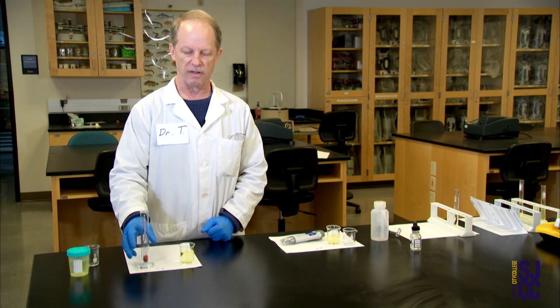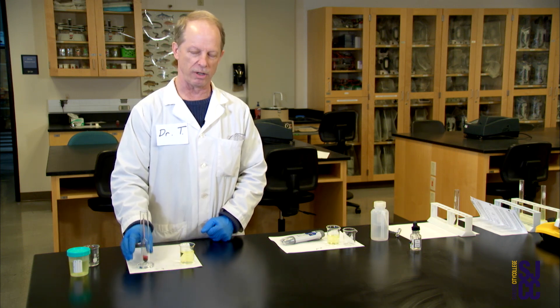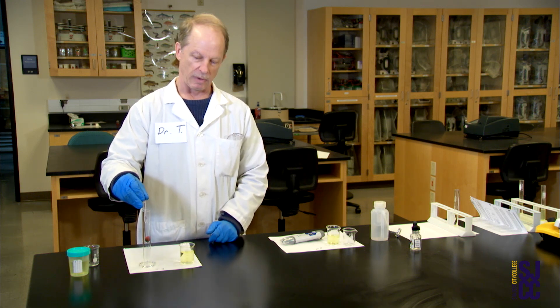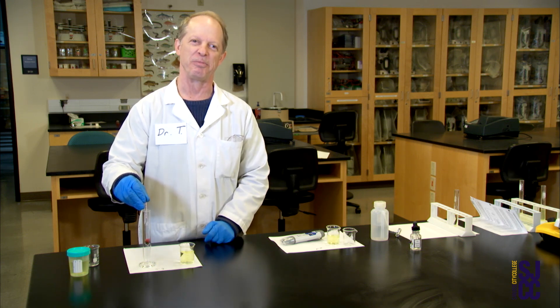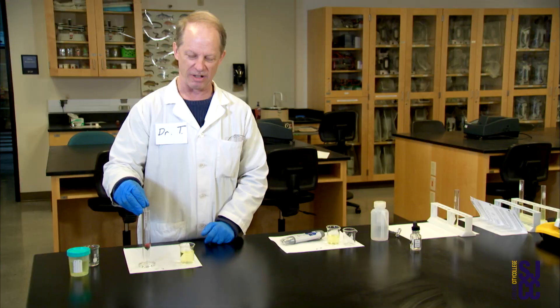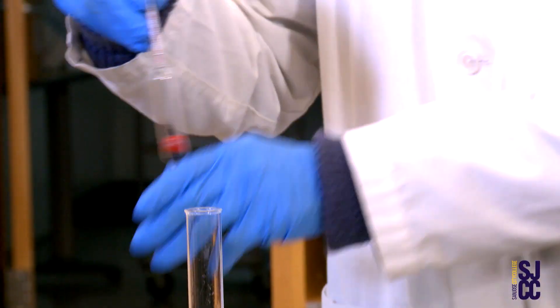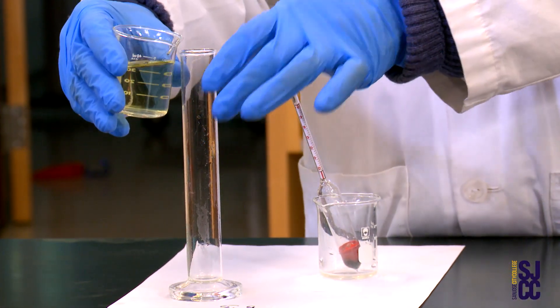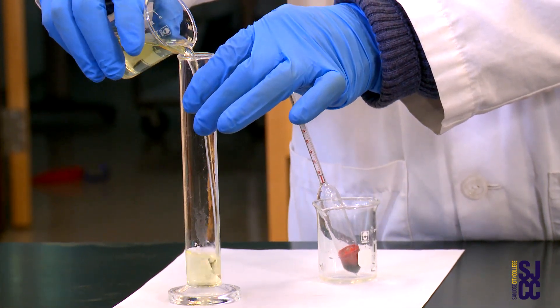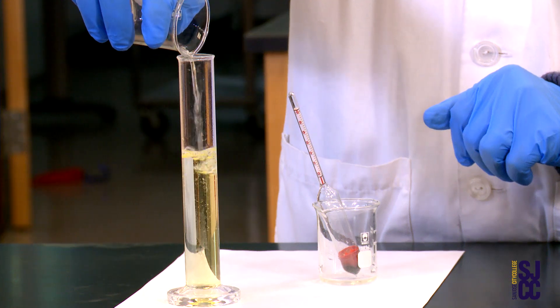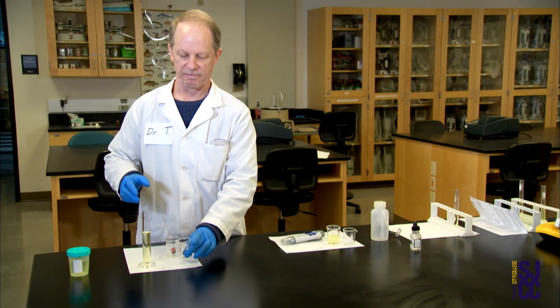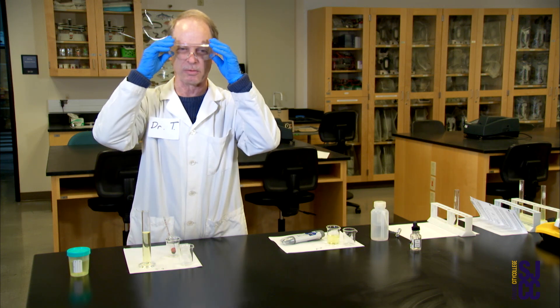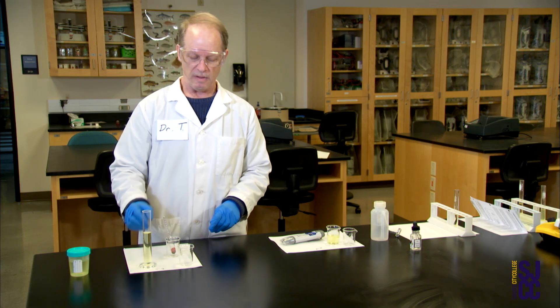The first thing I need to do here is take my urine sample and add it to this cylinder. It's called a urinometer cylinder and this thing here that floats is called the urinometer. I'm going to add the urine first to the cylinder. Oops, forgot my goggles in case it splashes - I don't want fake pee and sodium chloride in my eyes.